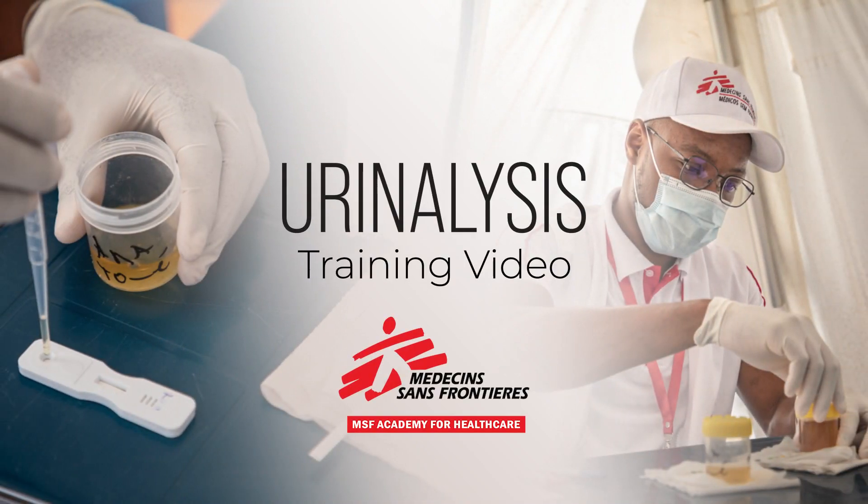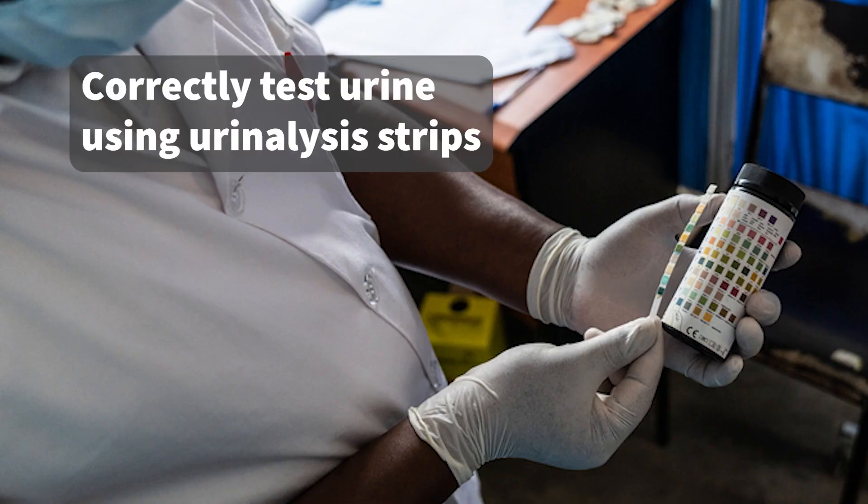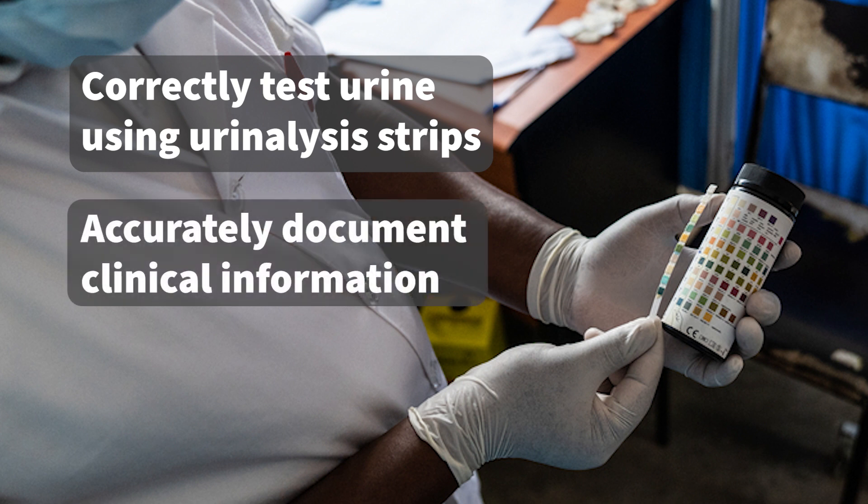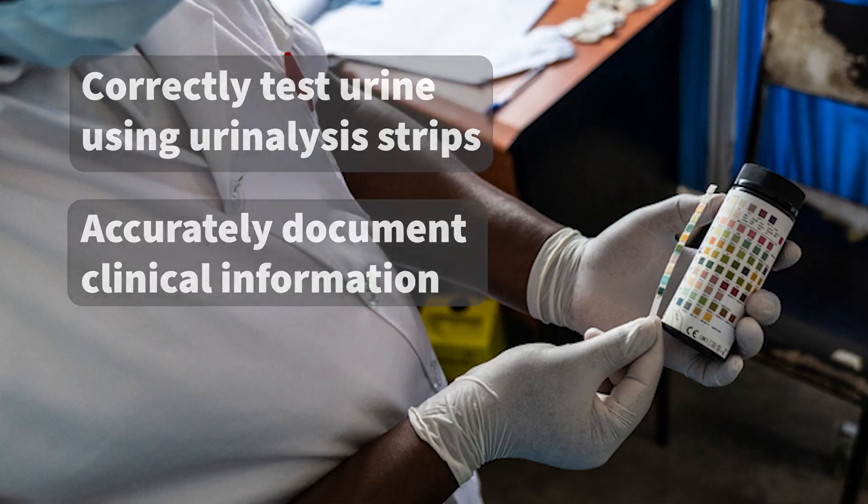Hello and welcome to this instructional video. Today we will explain how to correctly and safely test a urine sample using urinalysis strips or dipsticks, and accurately document the correct clinical information following completion of the task.